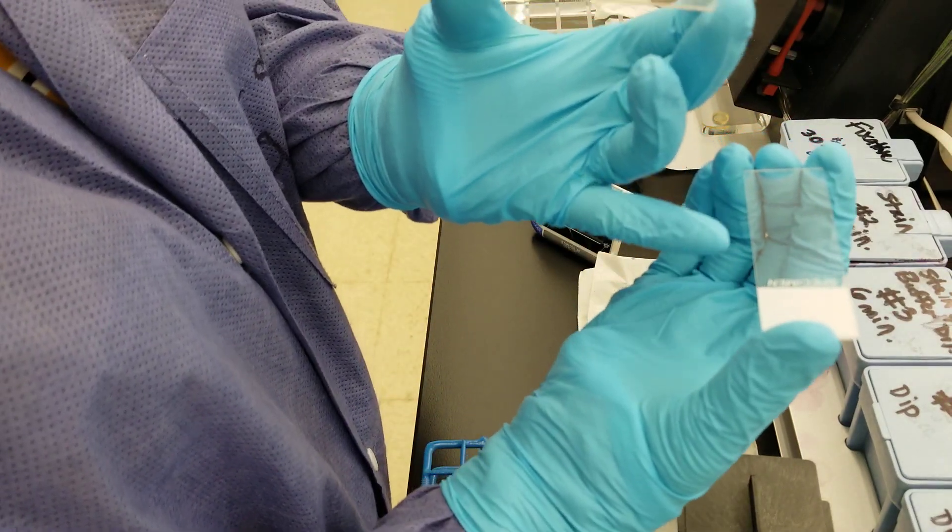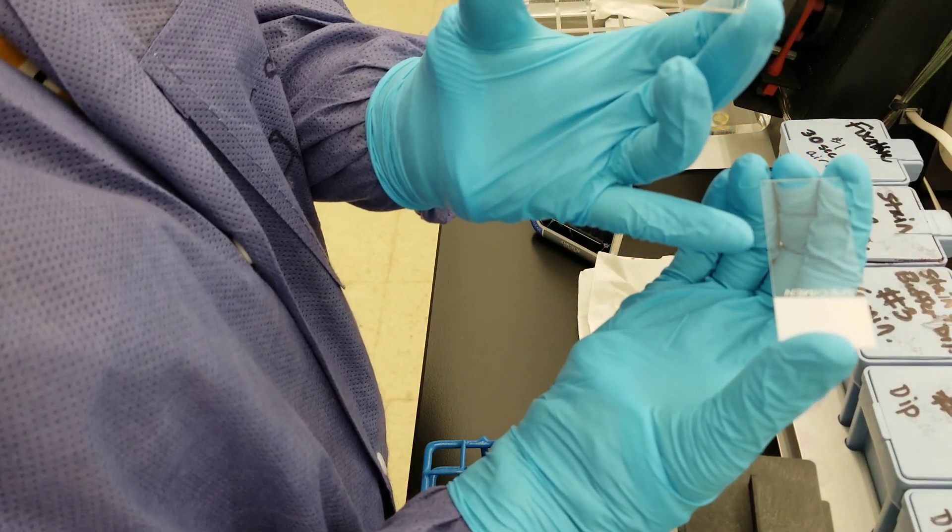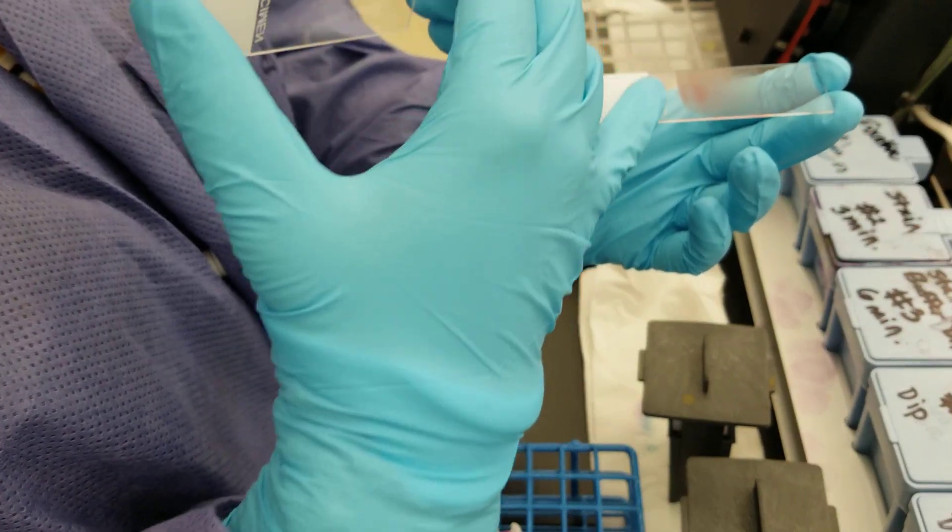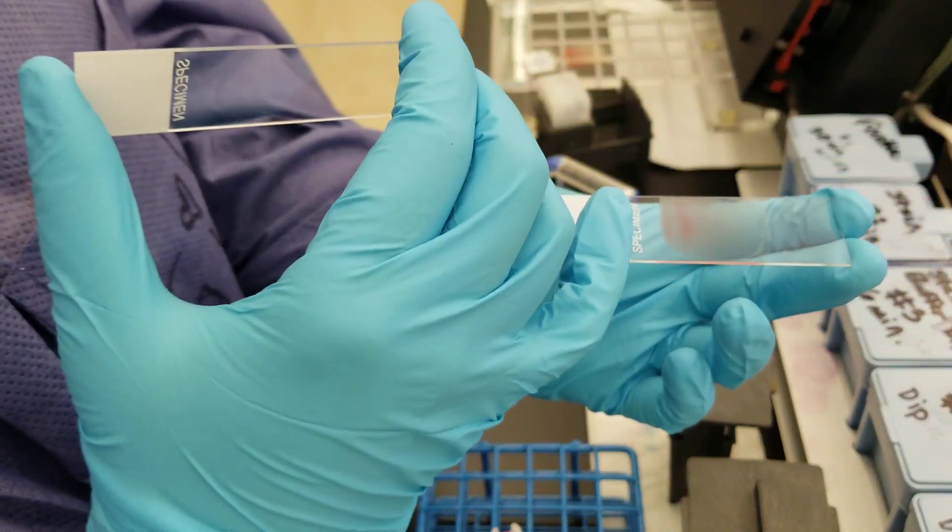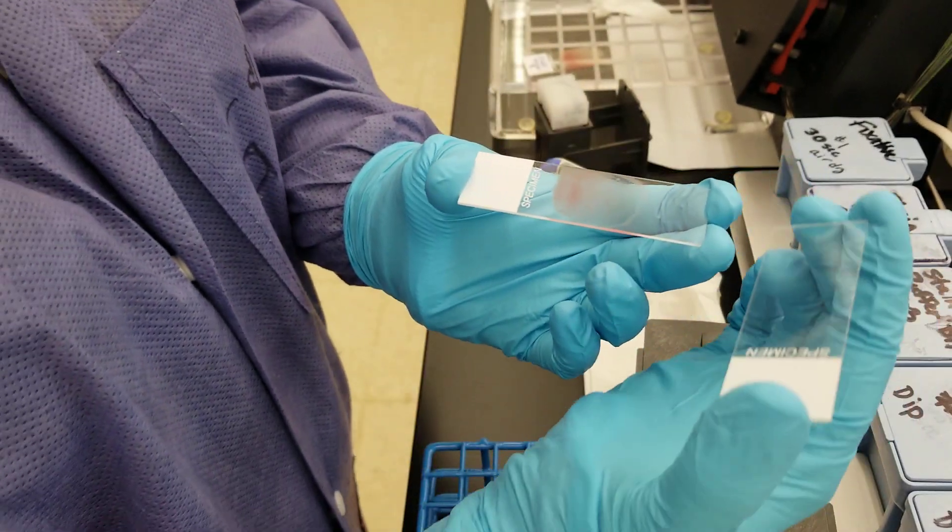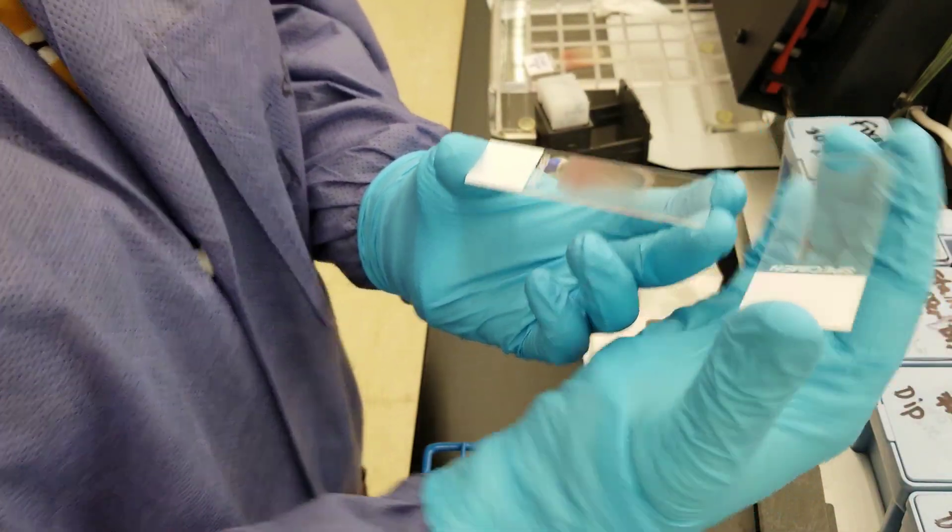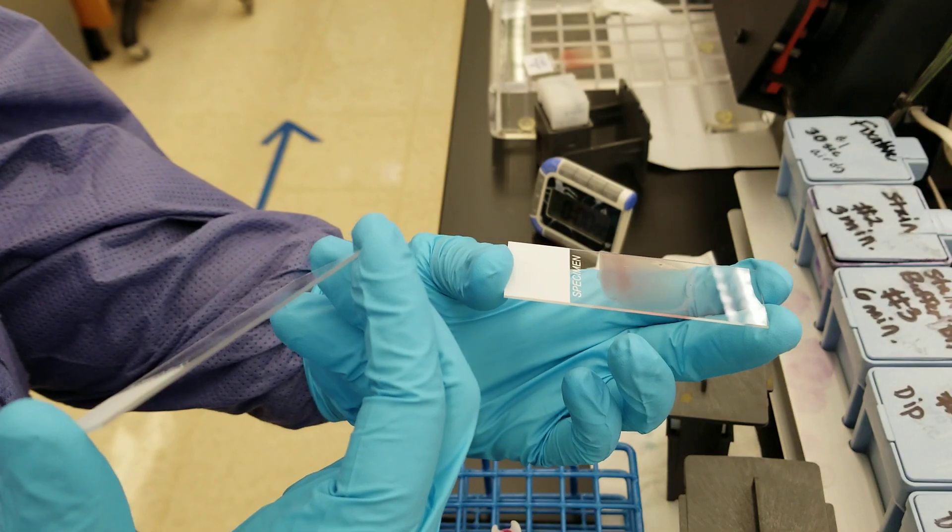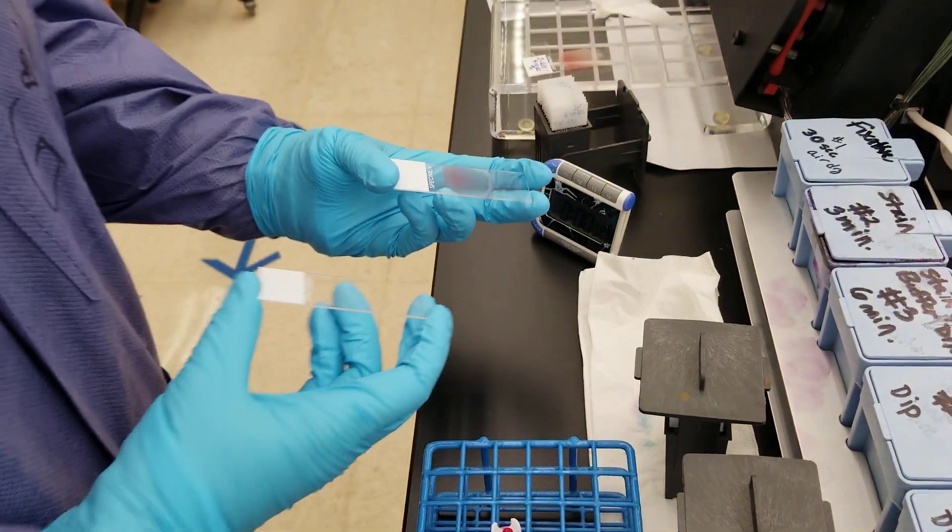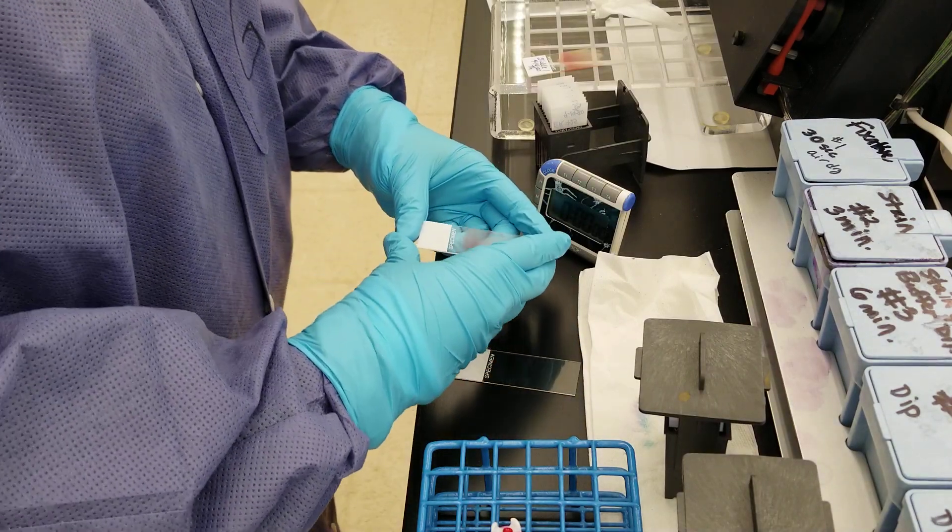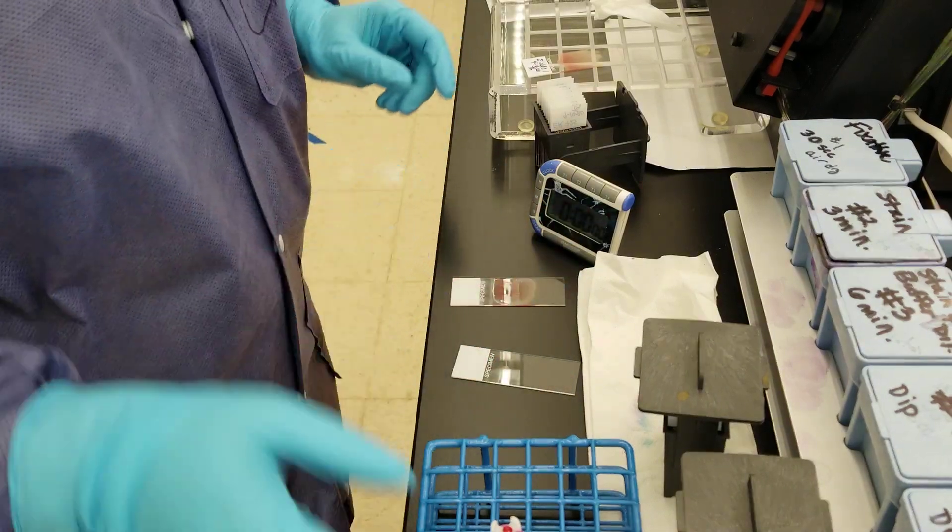I pull this slide and spread the blood across the width of this slide using this spreader here, the spreader slide. I really hope that you saw it, so we'll do it one more time to make sure you get to see that.